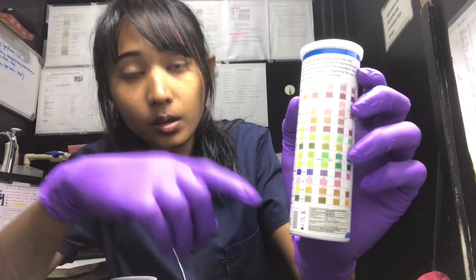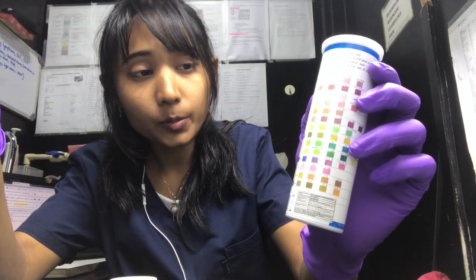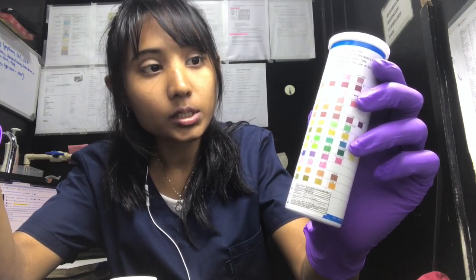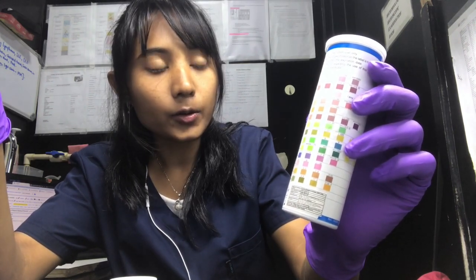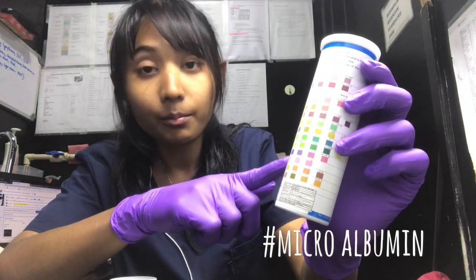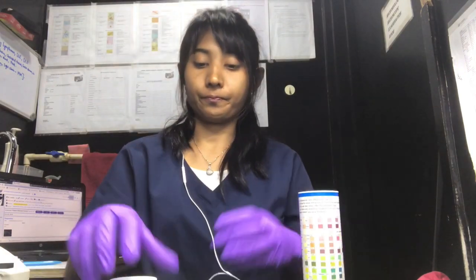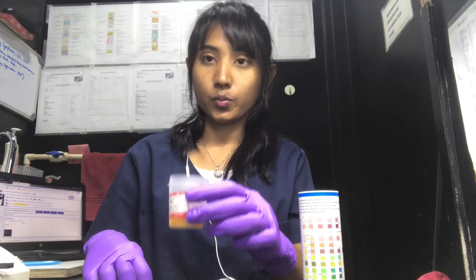In my laboratory we do 14 parameters, which includes total protein, glucose, specific gravity, pH, bilirubin, ketone bodies, nitrite, urobilinogen, leukocytes, RBCs, vitamin C, microalbumin, calcium, and creatinine.